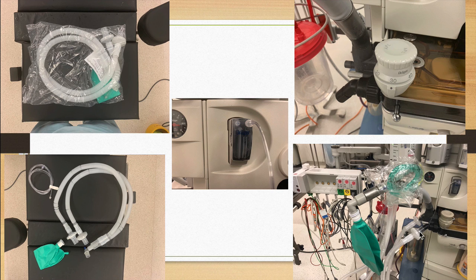The expiratory and inspiratory limbs are supplied here, and this little Y piece eventually is going to be connected to the mask. However, for machine check purposes, it will be plugged into this little nubbin that we'll go over in just a few slides. The sampling line itself connects not only to this little blue part here, if you can see this on the Y part, and then it travels over to the water trap, which again we'll go over in just a moment, and screws in here.